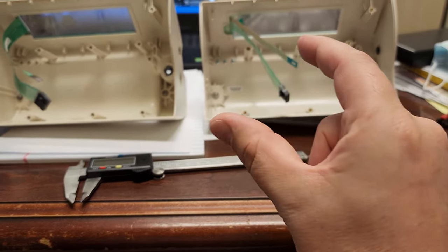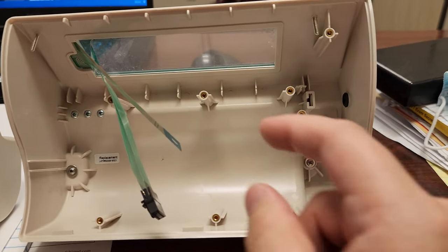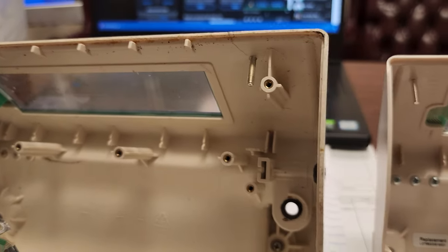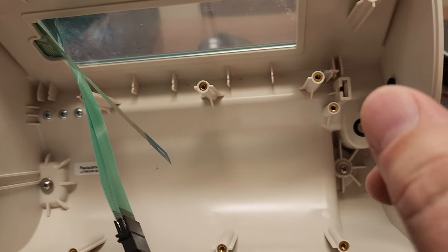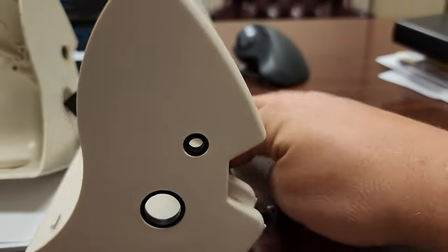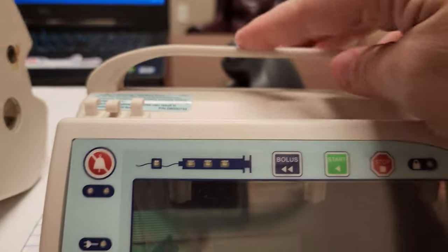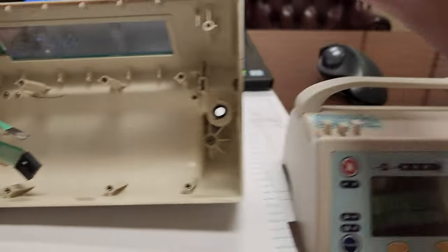It could be an improvement because having more brass gives them more material to adhere to, if they do it right. Everything else looks absolutely fine between the two. This one is really dirty and old, but the fasteners are all torqued down — I've checked them all. The rubber seals are all installed nice and neat. It almost looks like the handle is thicker by a little bit — maybe half a millimeter — on the aftermarket than the OEM.